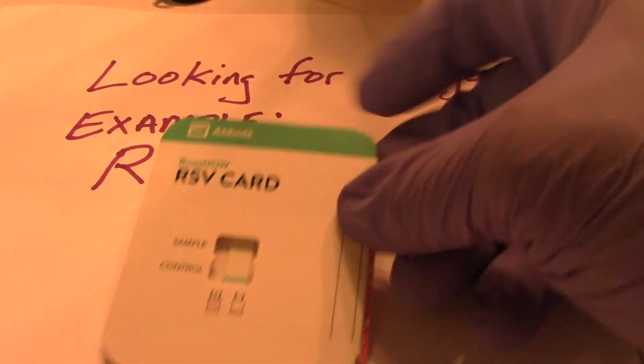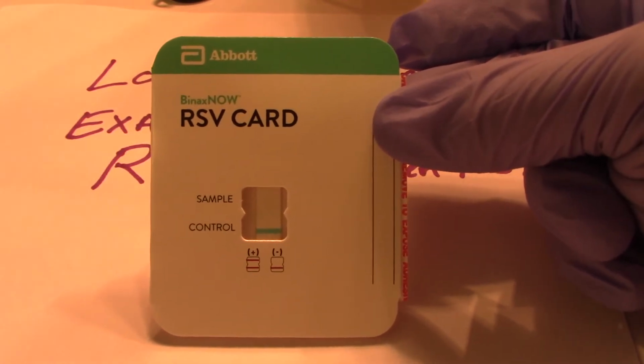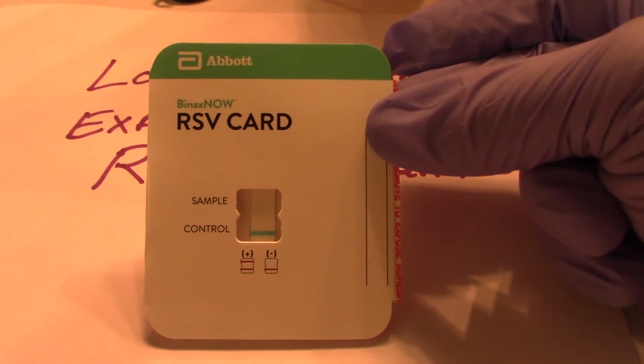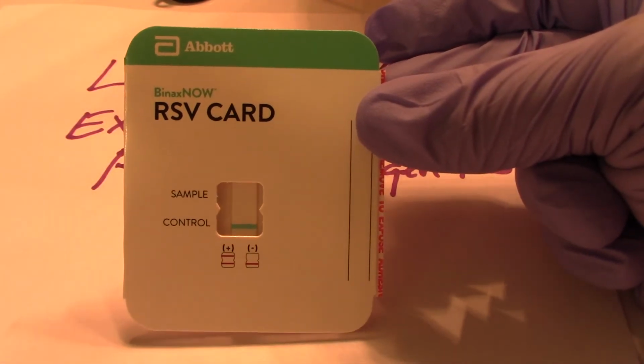The membrane comes in this little kit. This is the little kit we have right here. For some of the details, when it comes to doing the lab report, you can look into this particular methodology that's listed here.